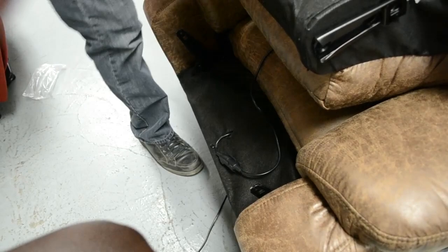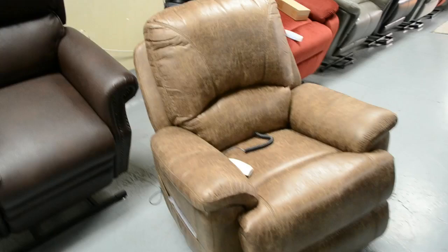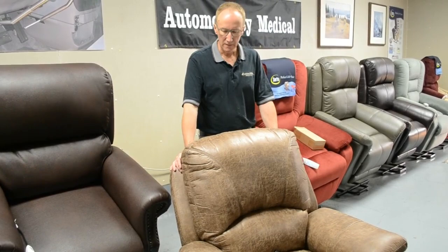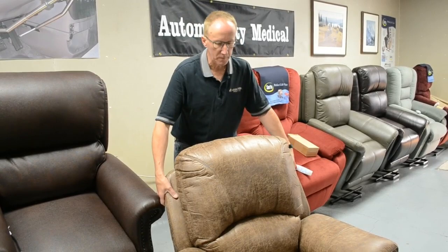Line them up — the forks to the receiver — one on this side and one on the other side. Once they're started you can just go to the back and shove it down; you'll hear it click into place. On that same receiver there are two tabs — if you ever want to remove it or take it to a different room, you just pull on the little tabs on the sides to release the spring pin in there and you can lift it back up. Once it's locked down you won't be able to lift it up anymore until you release those tabs.